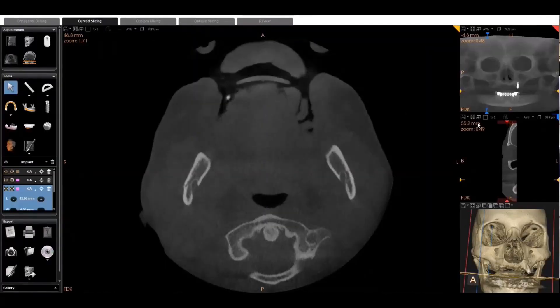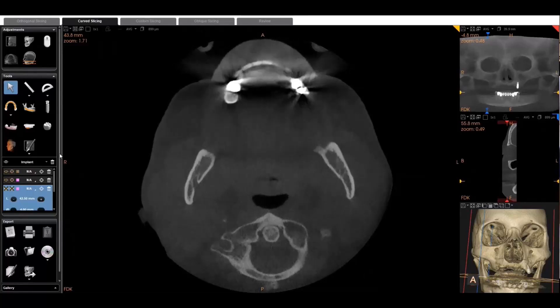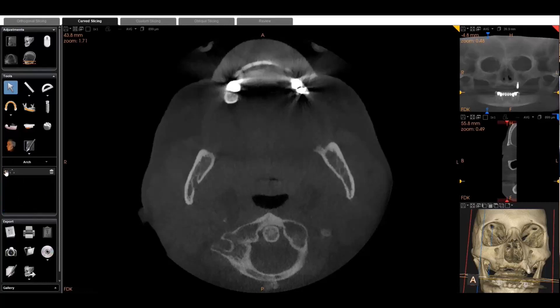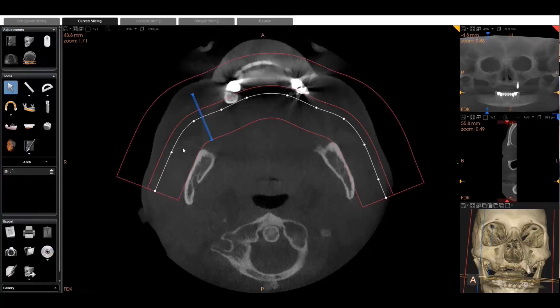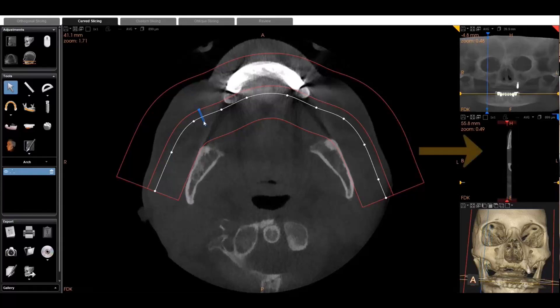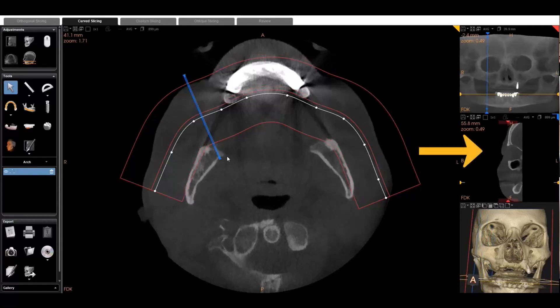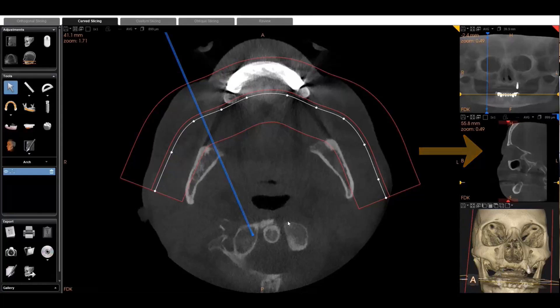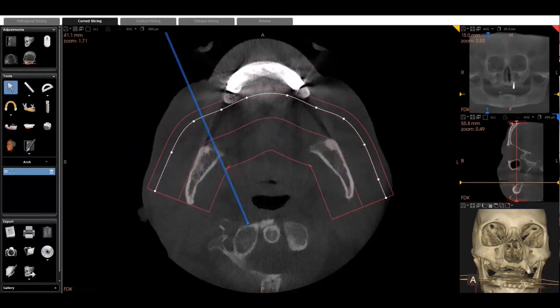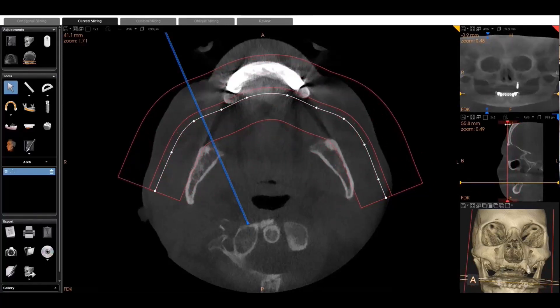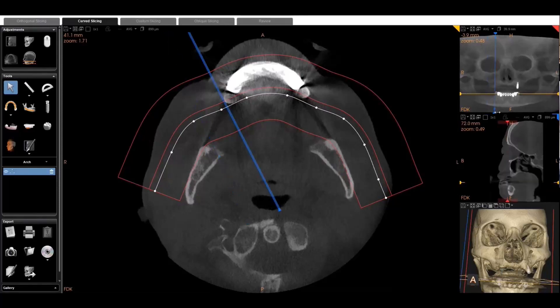So we've removed the other implants and we're going to begin planning. You're going to notice the shape of the arch that he's drawn — it's much wider than the normal maxillary arch, and you're going to need to do that to see the zygoma better. Plus the cross-sectional line, you can see we're dragging that to be much wider, and that's also important to be able to see the zygoma in the scan. I'm going to let some of this play out without talking over it, just so you can see, and I'll talk through some of the important points as we go.